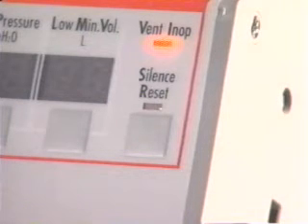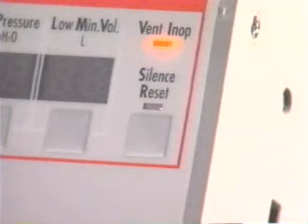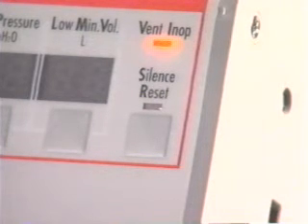To silence the in-op alarm, press the silence reset button. An in-op alarm is generated as part of the normal process of switching the ventilator off and does not indicate a problem. The in-op LED will remain lit for approximately 15 minutes and does not affect battery life.